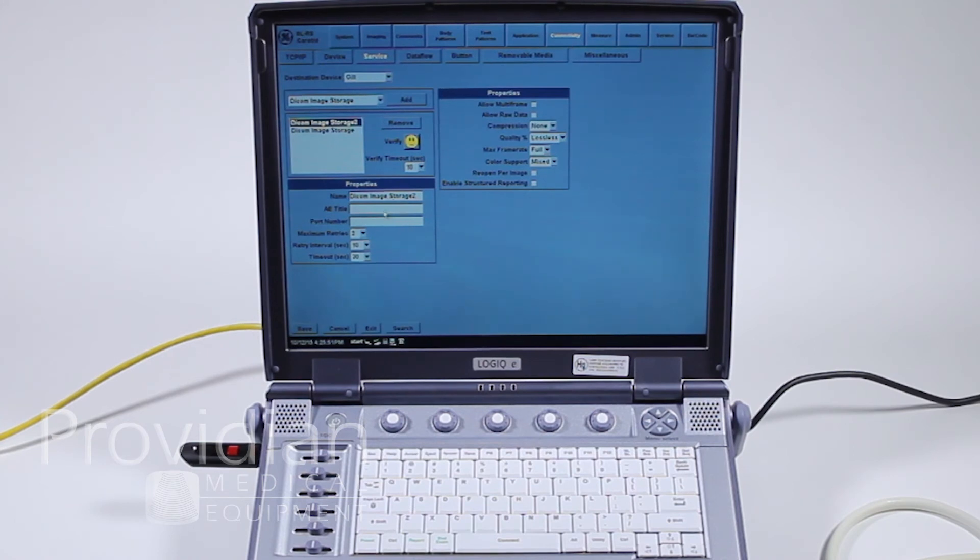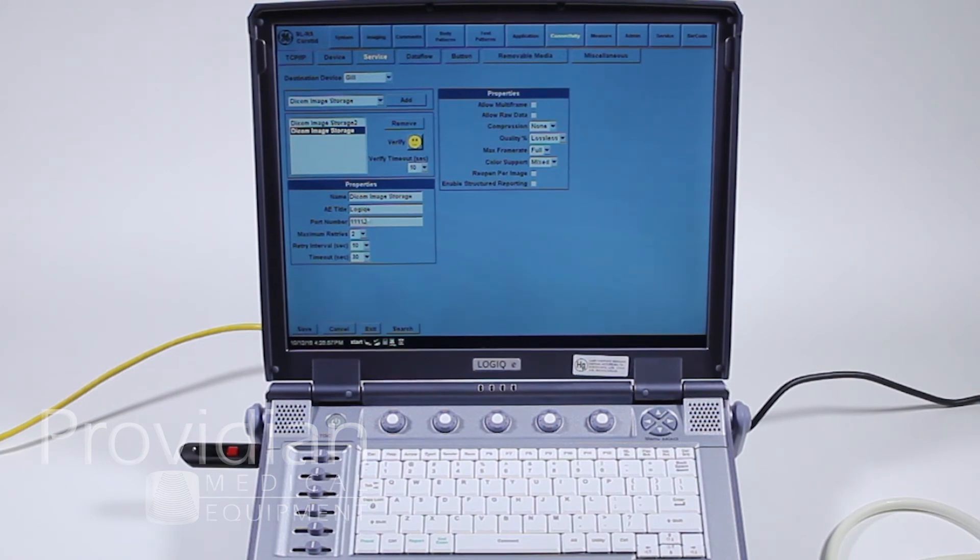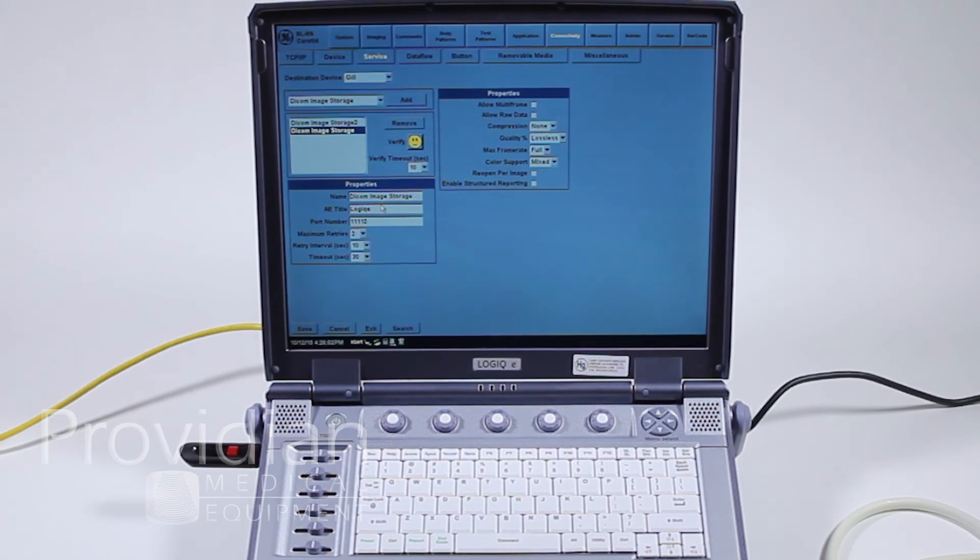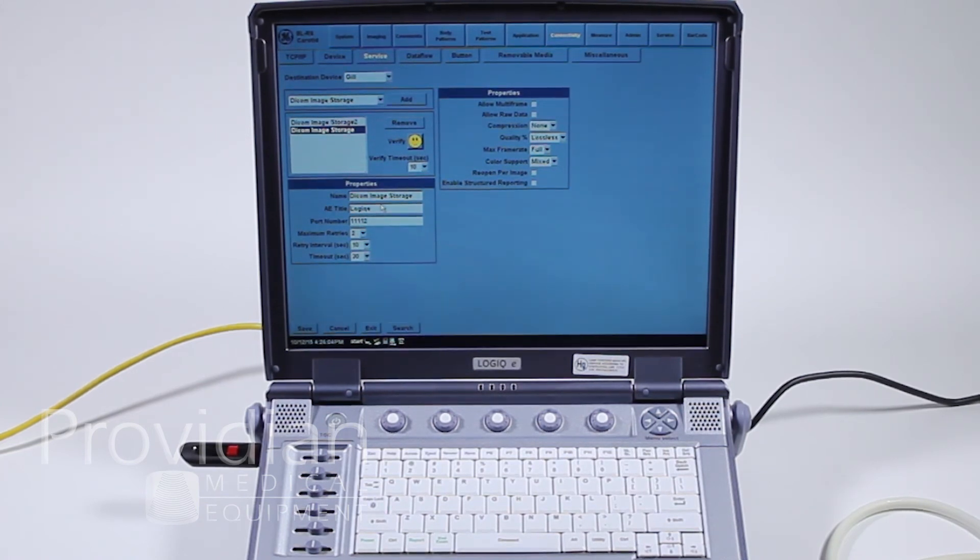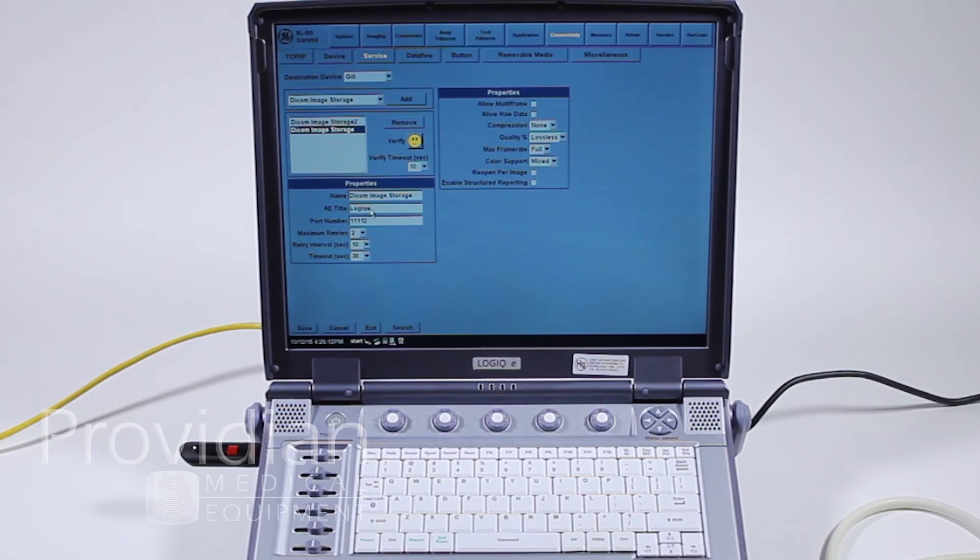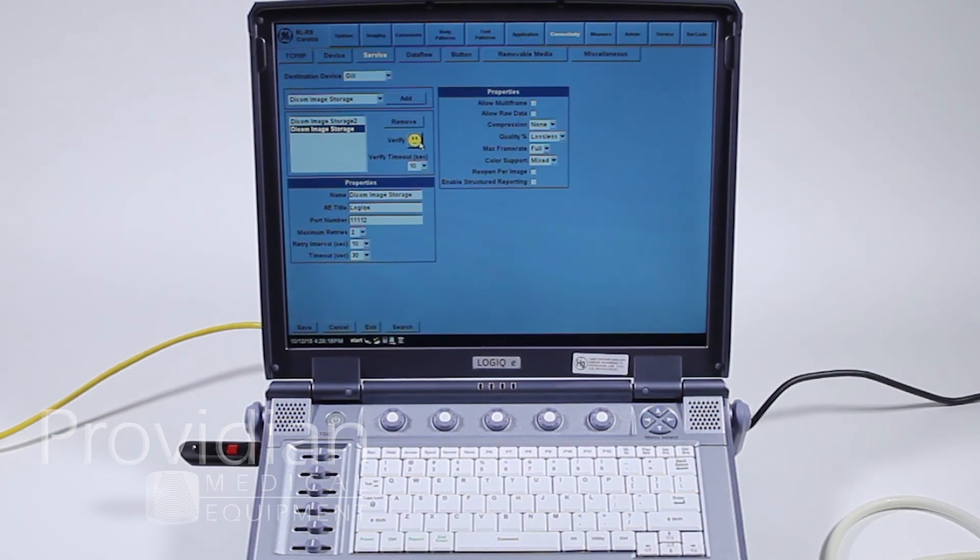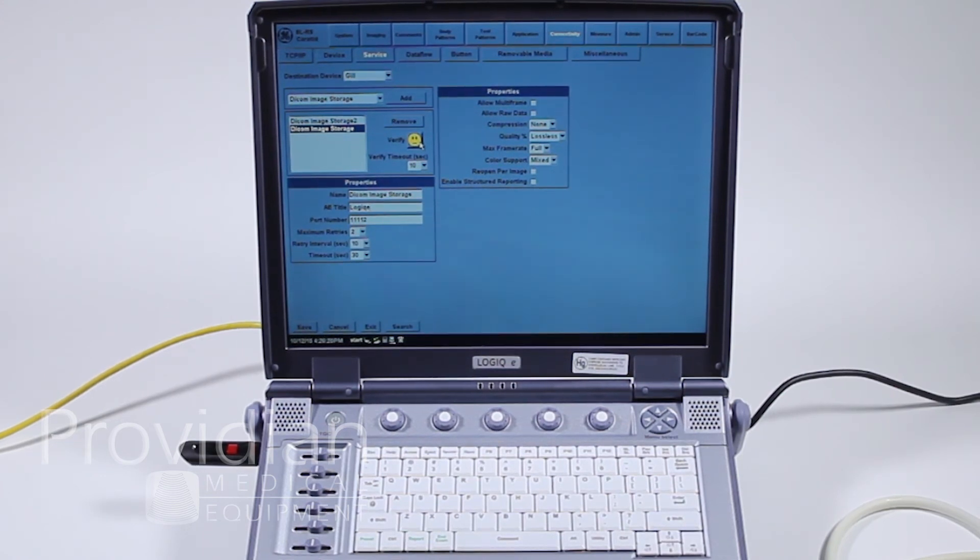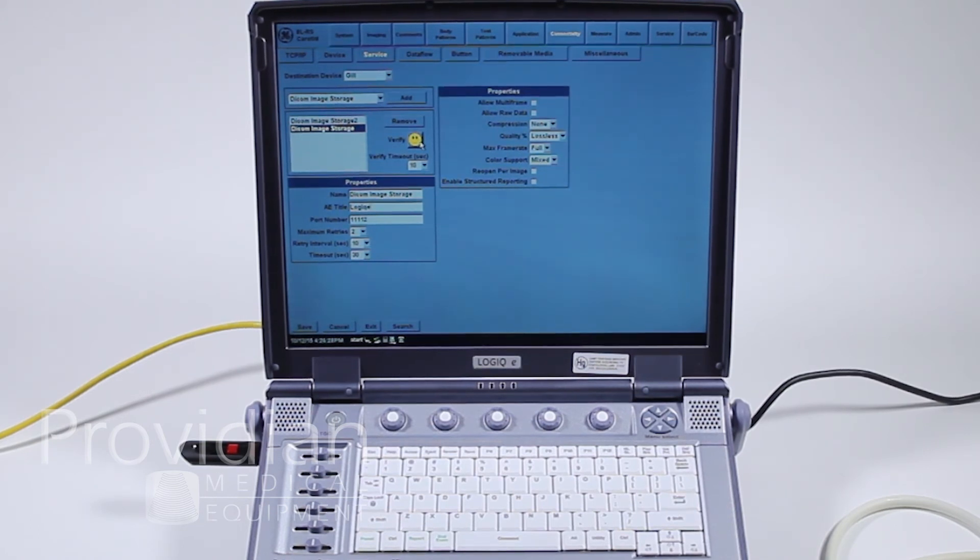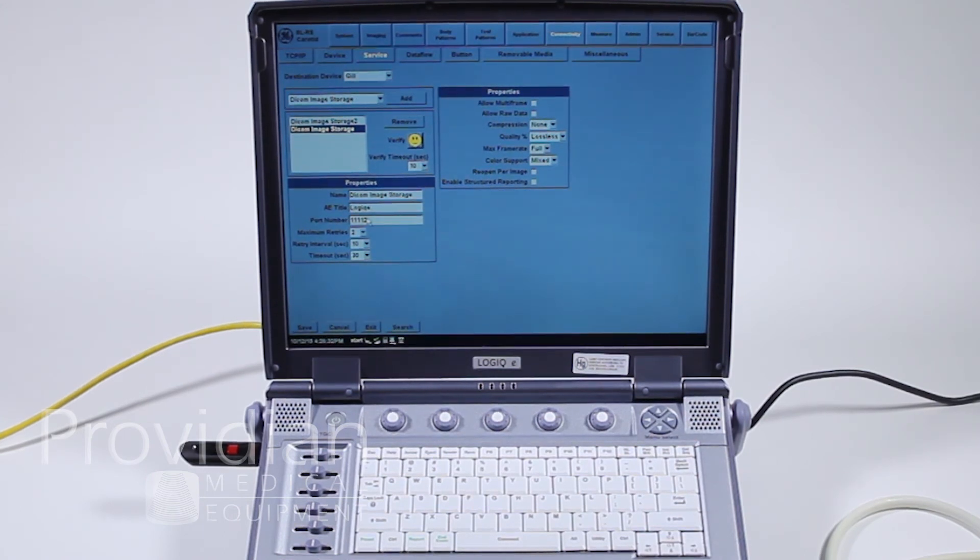Another very important thing here is when we enter this, you must have an AE title for the machine and a port number. Most DICOM servers insist on a proper AE title. You must type this in exactly as they've given it to you. If I was given an AE title here of Logic E, and they had it capitalized and I had it lowercase, when I click verify, it's going to give me a frowny face. It's going to tell me I didn't communicate with the server. You may still get the smiley face, but then when you try and transfer images, it will choke and you won't be able to transfer the images. It will just stay there saying it's still queued.